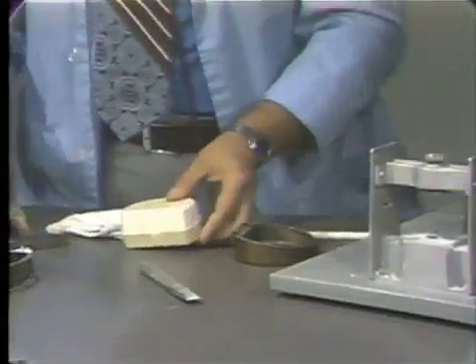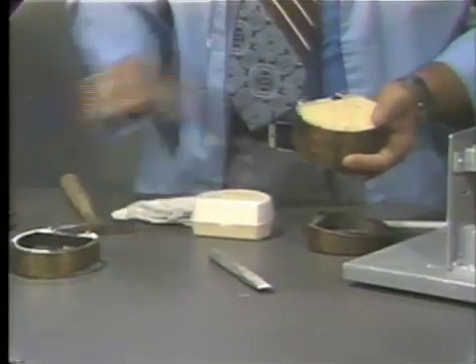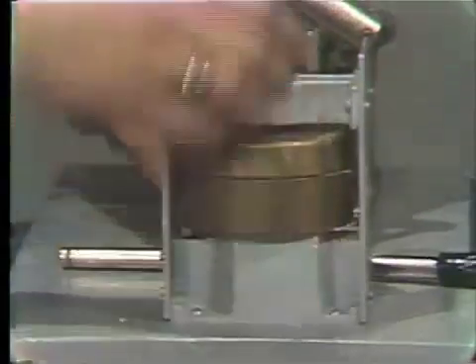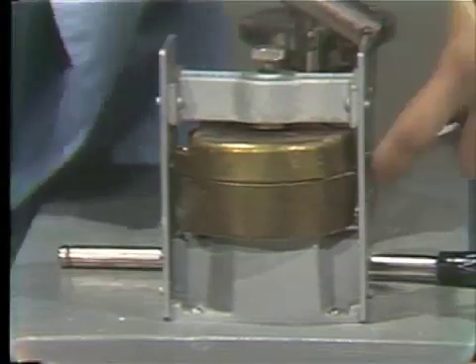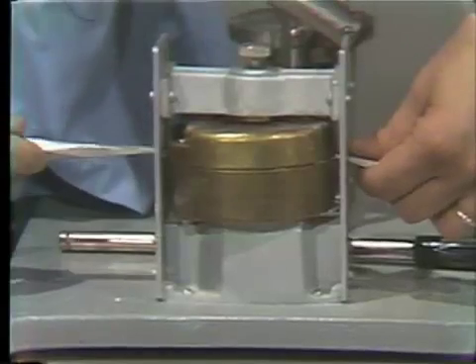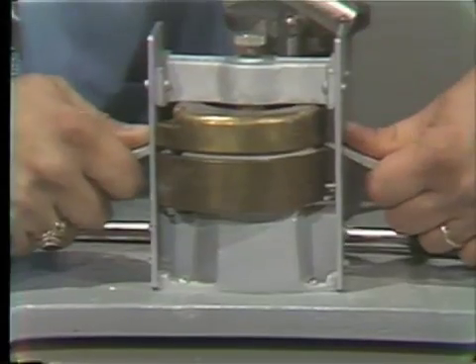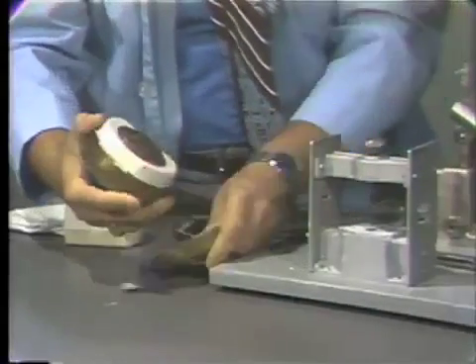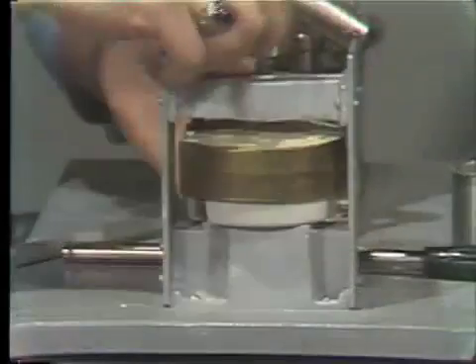I will go ahead and do this now with the maxillary flask. Again, we pry the top off. Place it back into the ejector, again placing the ring first, getting a slight amount of clearance. Putting our ejector in the grooves and simply pressing up hard. We'll remove this section and the ring and again go back, placing the top of the flask against the plate.